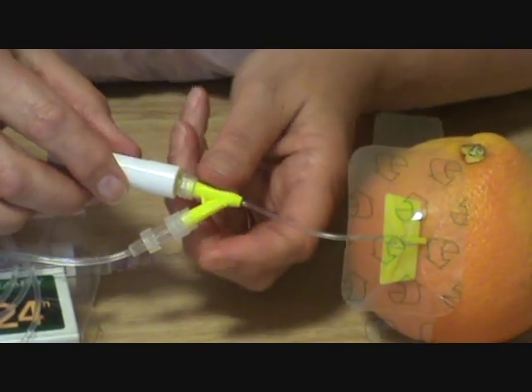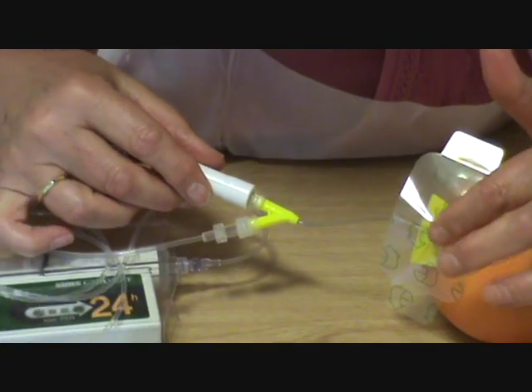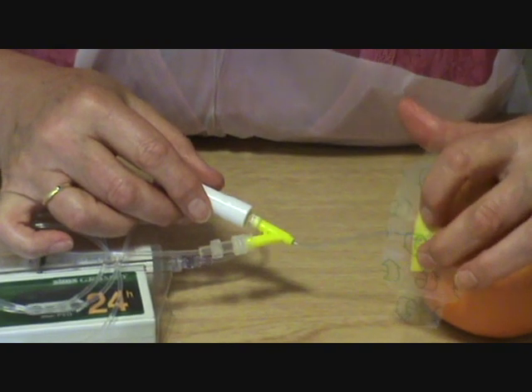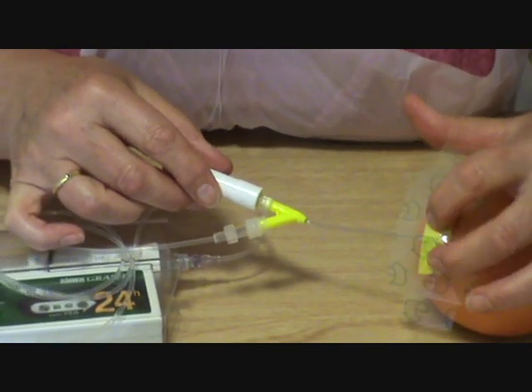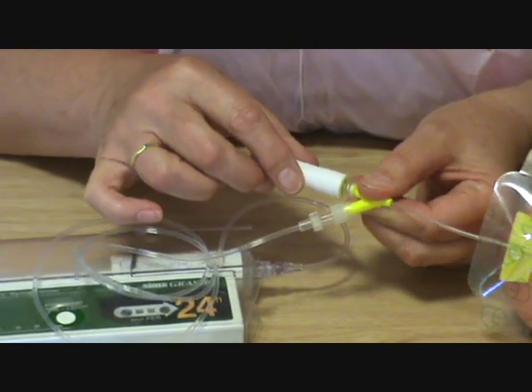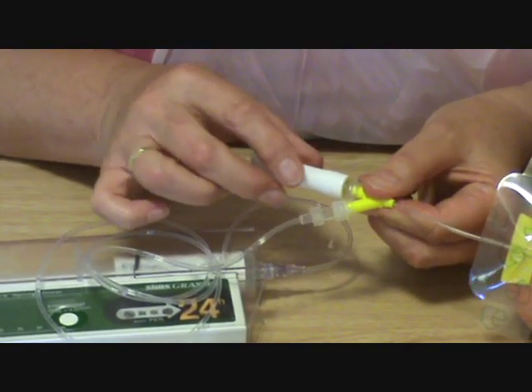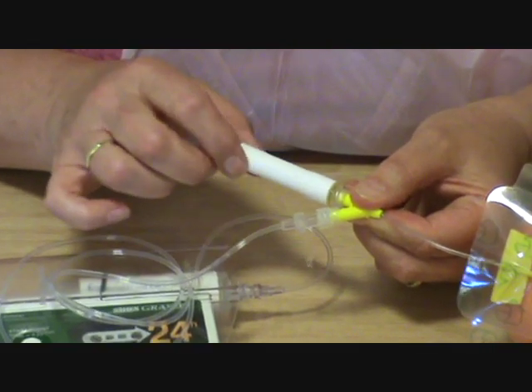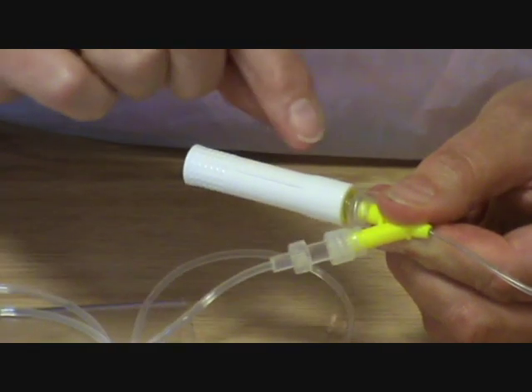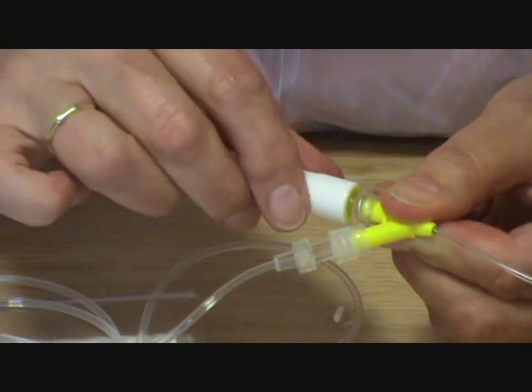You need to keep it straight. You can see that's not completely against the patient's skin, but if you're in situ with the patient, it would be better to have it against the skin. Now, you pull very strongly — but hold it here — because you have to pull quite hard on this white cover. What happens is it pulls the introducer out and covers it up. So it really reduces the amount of sharp injuries and makes it much, much safer to use. And there it is — the sharp piece is retained within that. Do put it in the sharps bin.